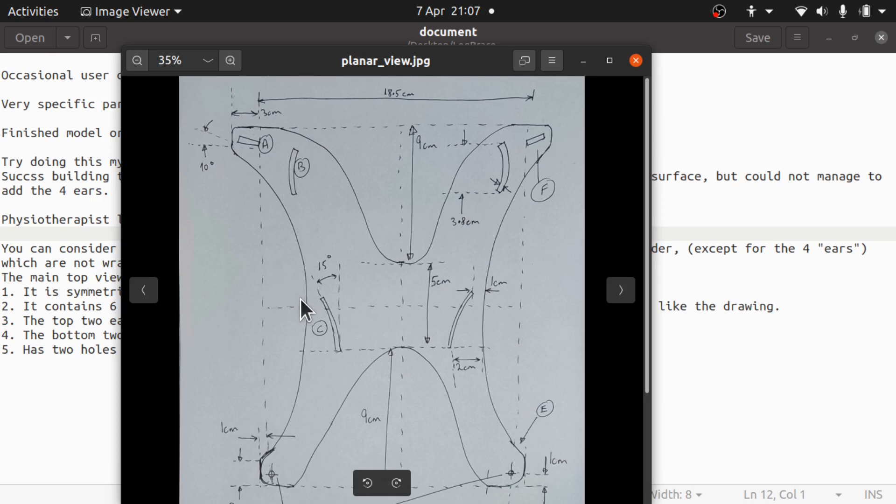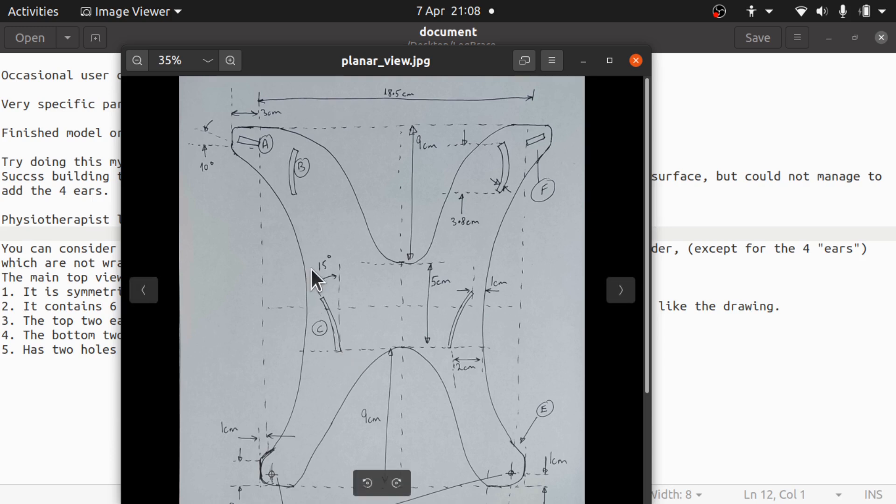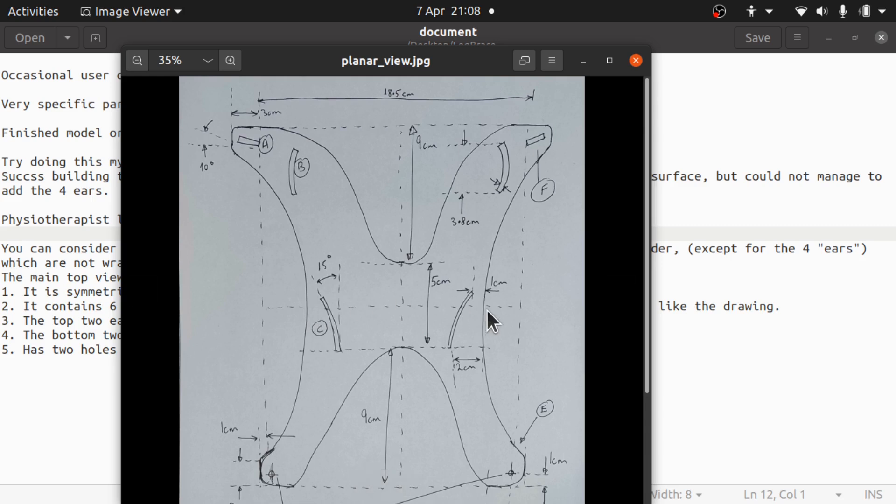I'm not sure about dimensions here from the boundary line, which is around here to this point. This is where I've started to think about should we go down a spreadsheet route, which makes things a lot easier to tweak these options. We can alias these up and actually allow for that movement in there.